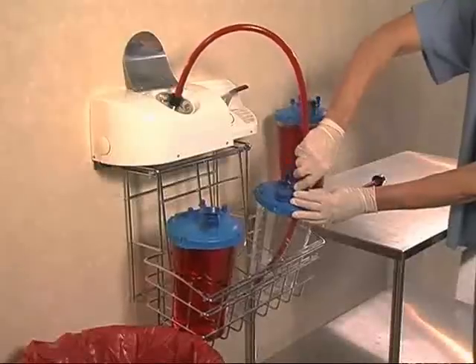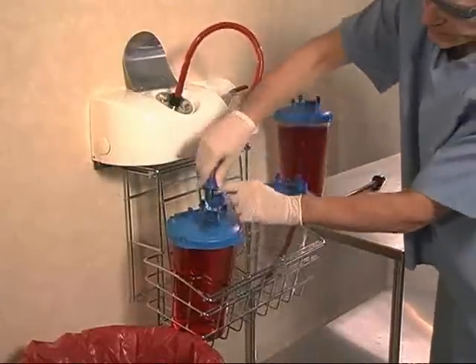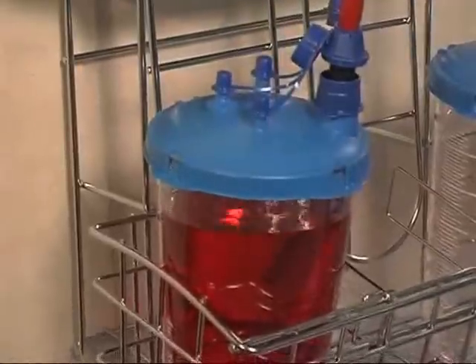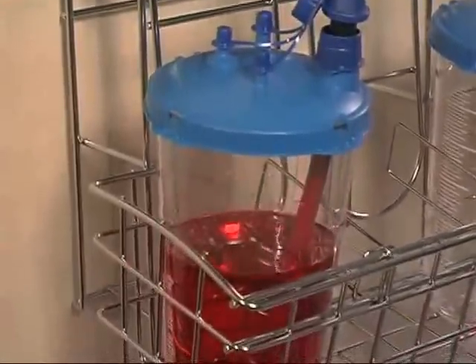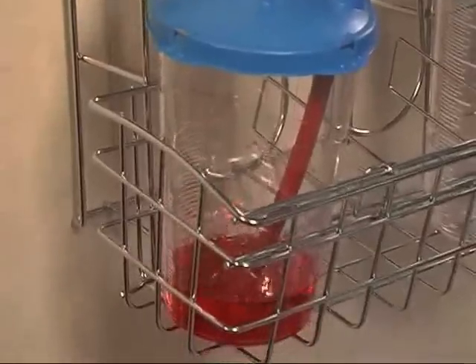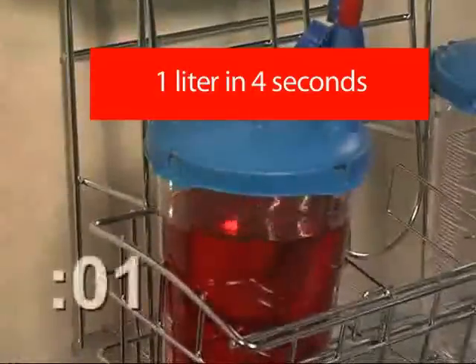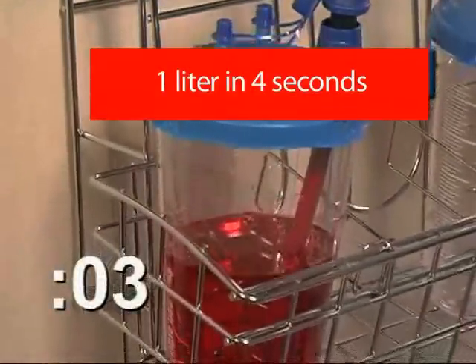In the next step, we detach the pump tube from the empty canister, then reattach the pump tube to the canister that is full of infectious liquid medical waste. The pump tube facilitates the connection between the suction canister and the evacuation device. The device will empty one liter of fluid in approximately four seconds.